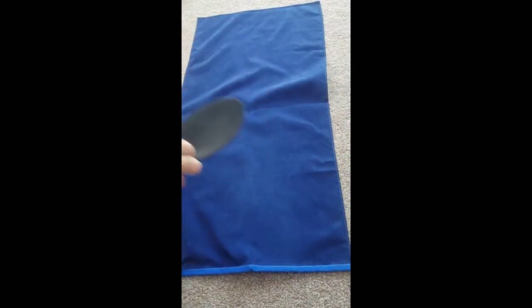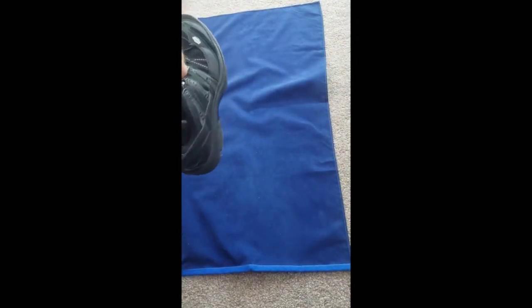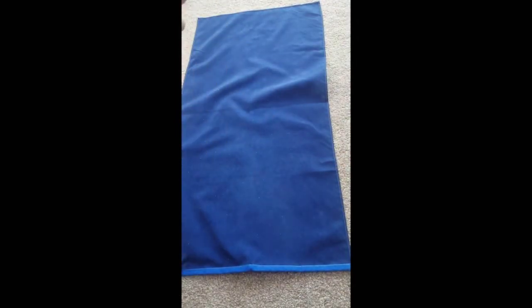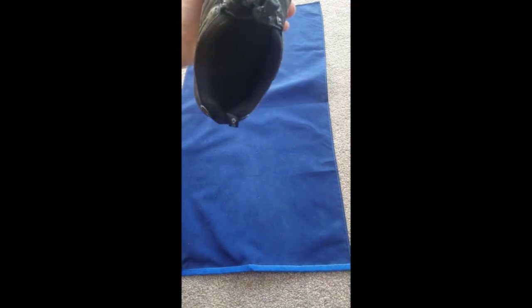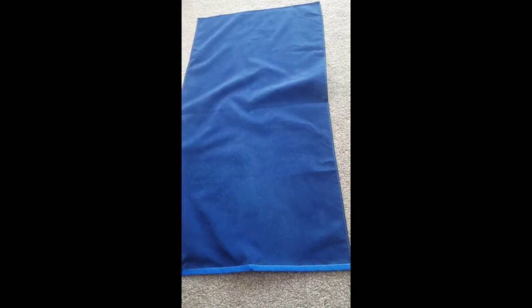And then you place it inside the shoe like that, and that's our Plastazote insole sheet.